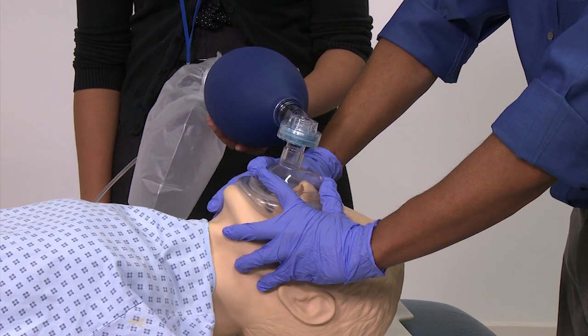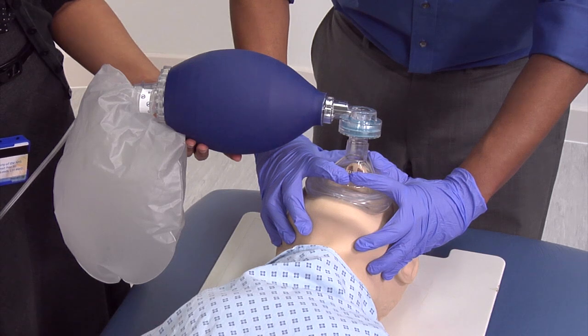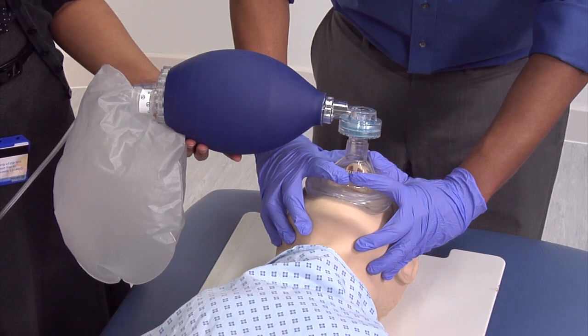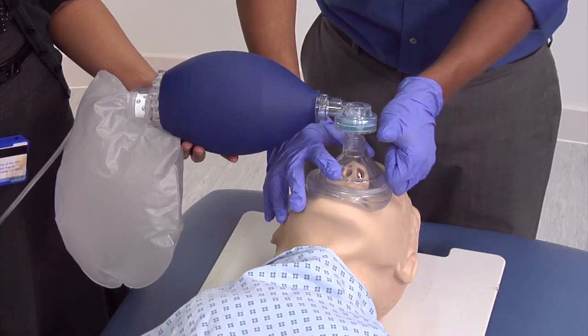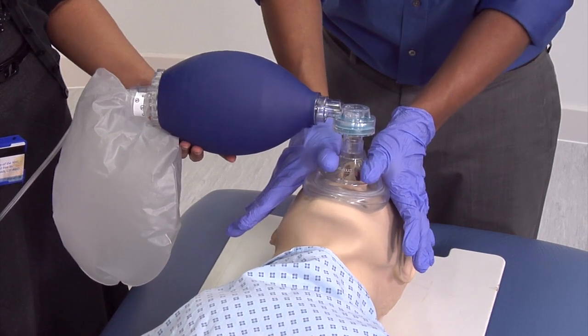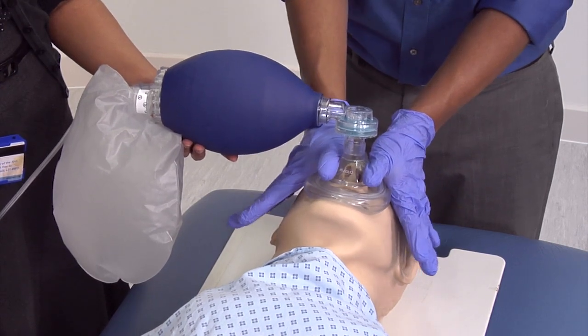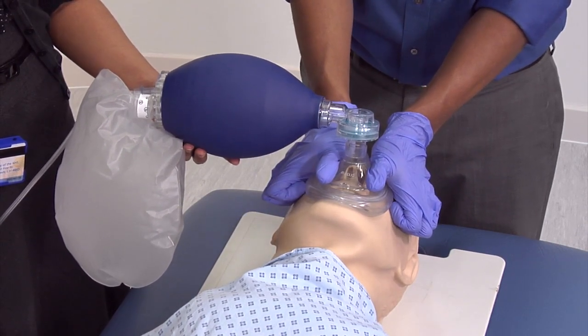An alternative grip is to apply downward pressure on the mask with just the thumbs, using the thenar eminences to stabilise the mask in place and the fingers to pull the jaw upwards.